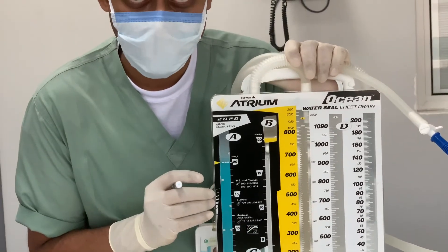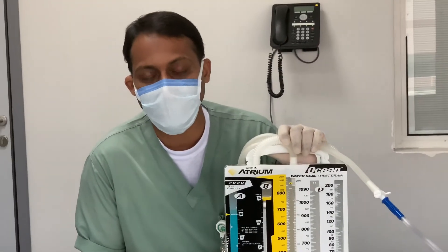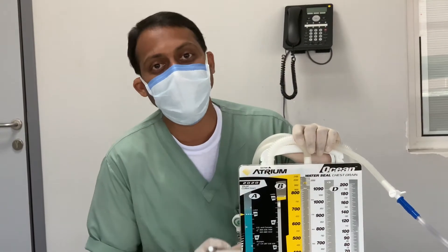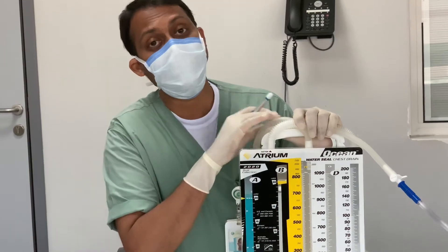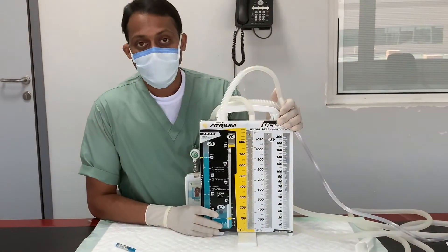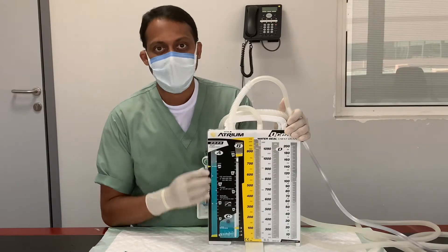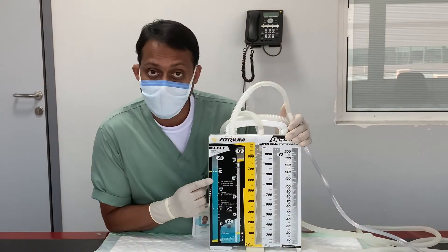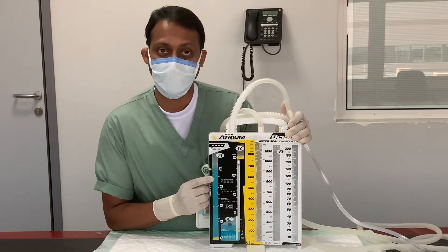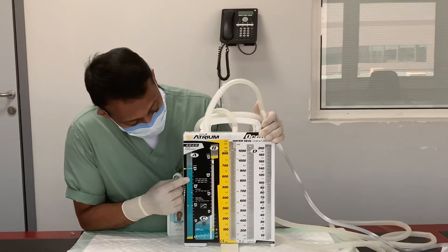Almost all physicians will order minus 20 centimeters of water suction pressure. If that is the order, simply fill the suction control chamber to the 20-centimeter level, connect to wall-mounted suction, and adjust the valve for mild and steady bubbling. If the doctor orders suction pressure beyond minus 20 — such as minus 30 or minus 40 — since the maximum water level we can fill is 20, the maximum we can provide normally is minus 20 centimeters of water.